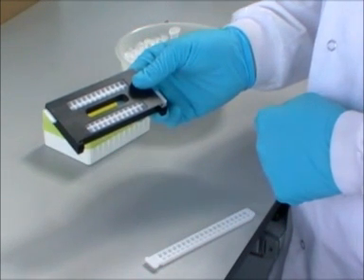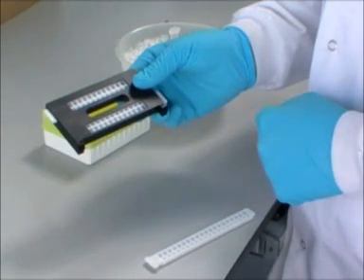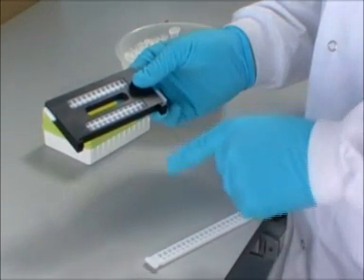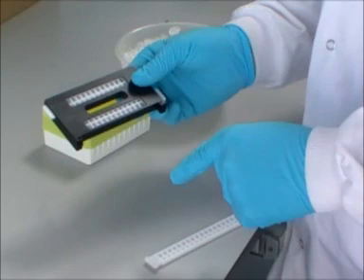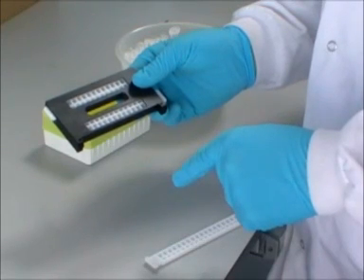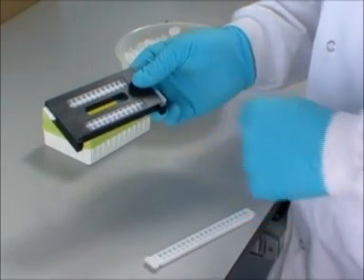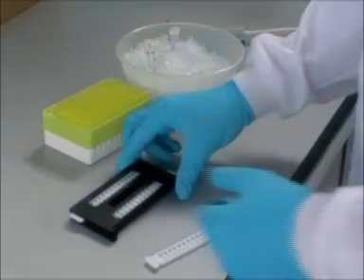Whereas with the alkaline gel, with a pH normally in the range 8.4 to 8.6, the haemoglobin variants all migrate towards the anode. So the samples are loaded on the gel more to the cathode end.